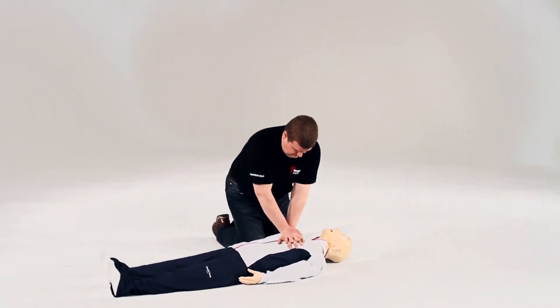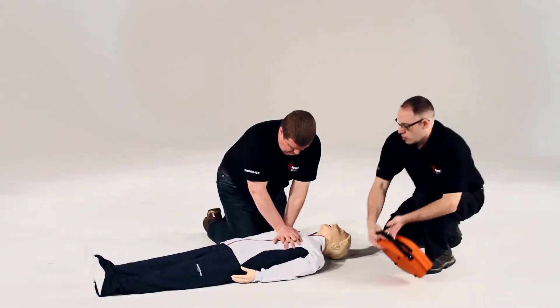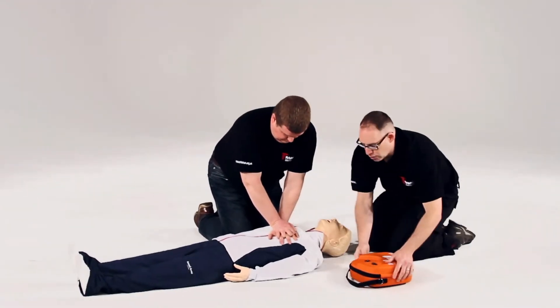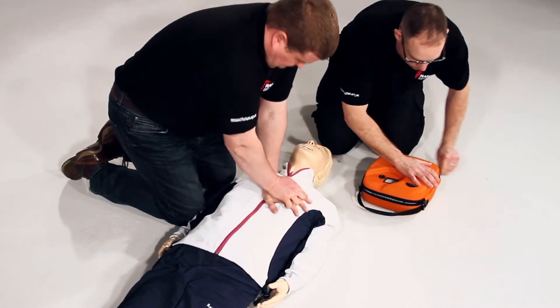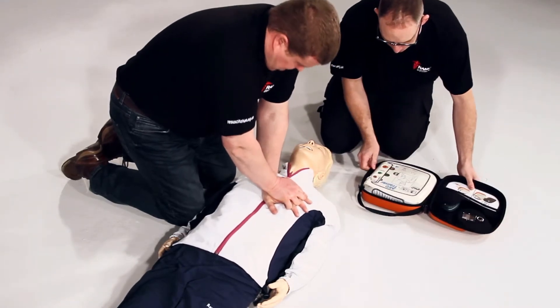When the AED arrives, the first person should continue CPR. The second person should immediately switch the AED on and follow the voice prompts.